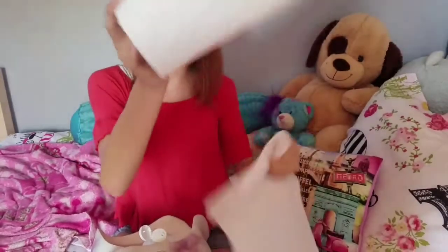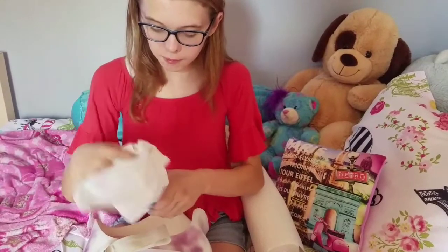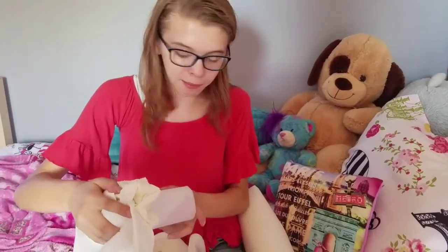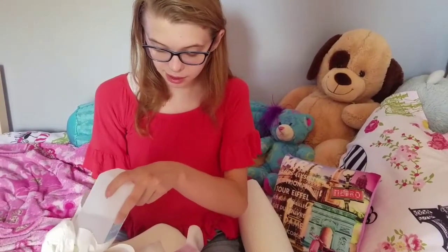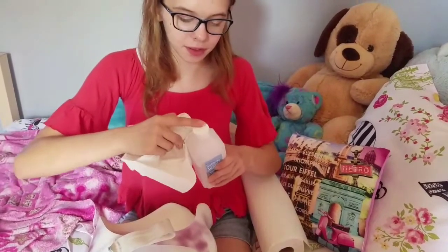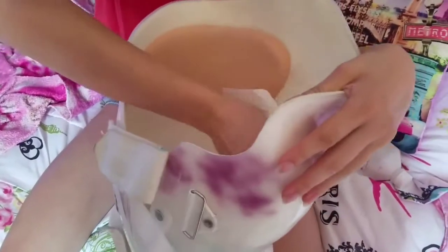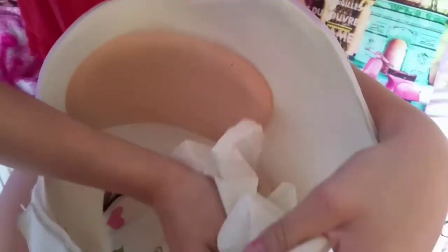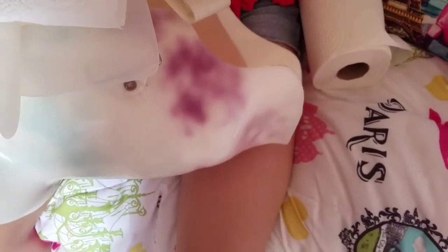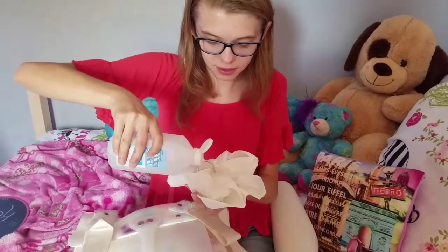If you want a thorough clean, you can also clean your straps, because my straps tend to get hairy. Even though I wrap all the loops, all the hair from my stuff gets in it, and then my actual hair gets in it, so it becomes a mess. So you really just want to rub the rubbing alcohol all in your brace — it'll smell a little funky, but that's just the rubbing alcohol.